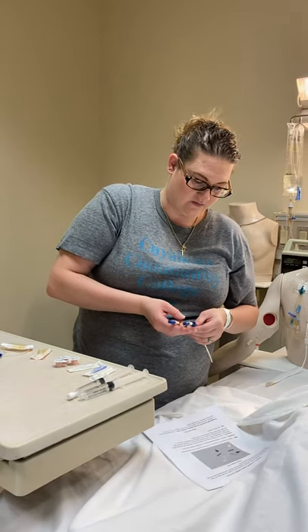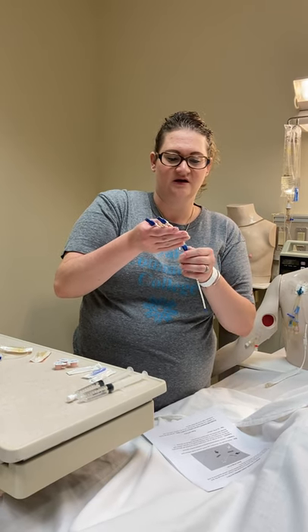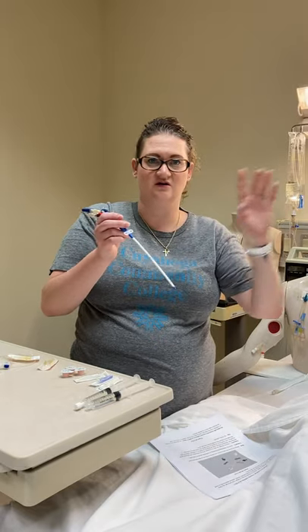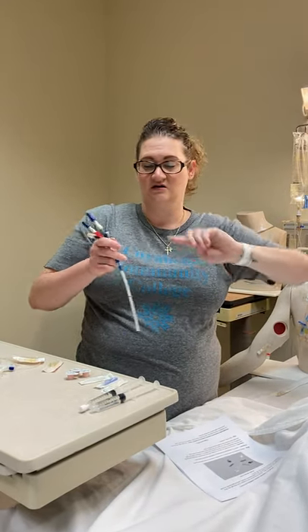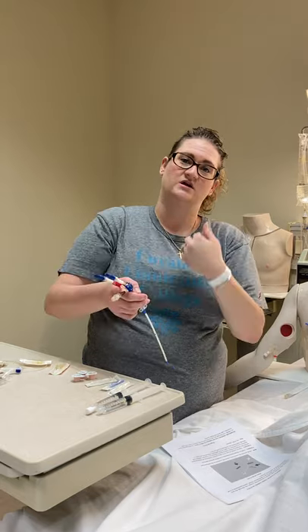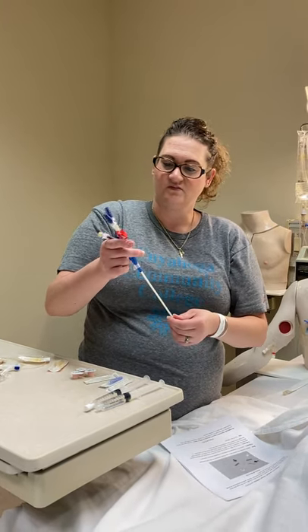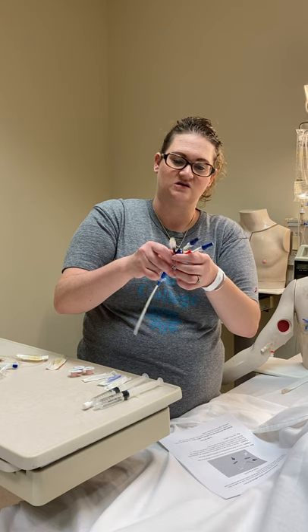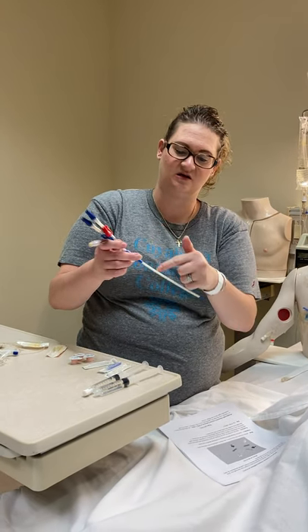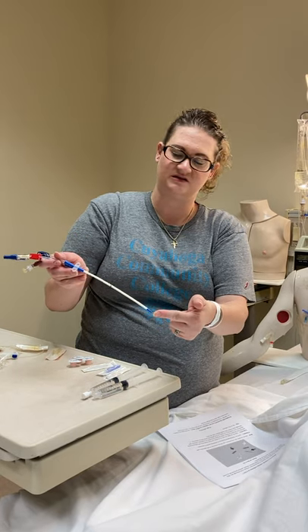Typically we have a proximal, a medial, and a distal lumen. The distal is going to be furthest. The middle is in the middle, and then the proximal is whatever one is closest to the patient. When this is inserted, the proximal one is going to be down here, then we have the middle, and then the distal is on the end.